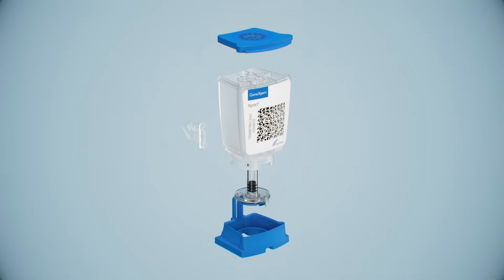Here's a look inside the GeneXpert cartridge. The GeneXpert cartridge comprises the foot, the valve, the body, the reaction tube, and the top.